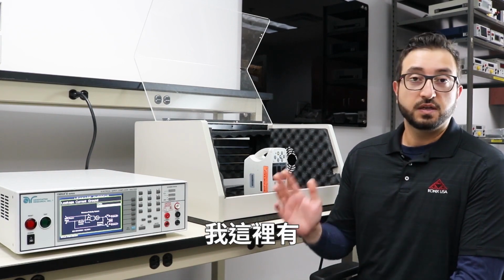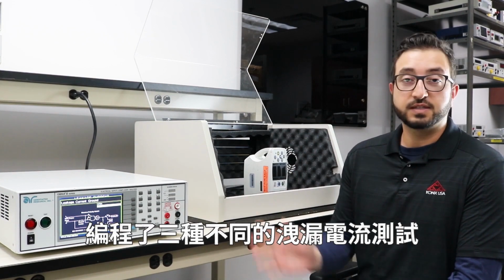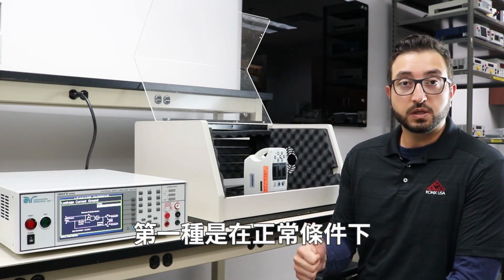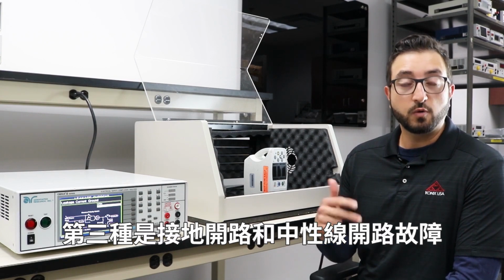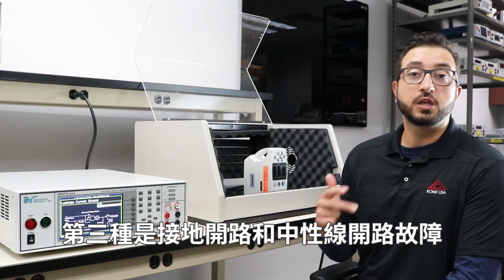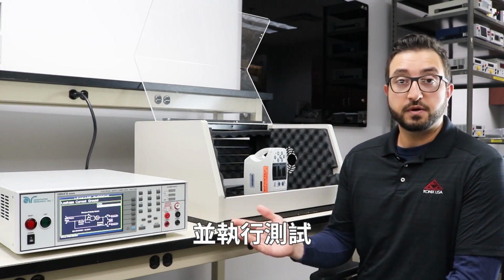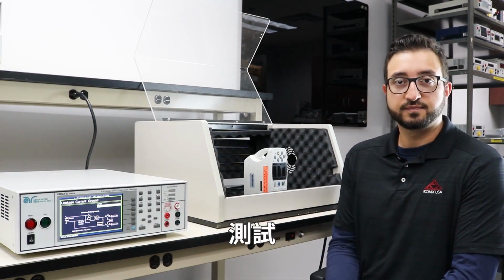What I have here is 3 different Earth Leakage tests programmed into our electrical safety test analyzer, with the first one being under normal conditions, the second one with an open ground, and the third one with an open ground and an open neutral fault condition. So let's take a look at the test parameters in detail before we make the connections and execute the test.